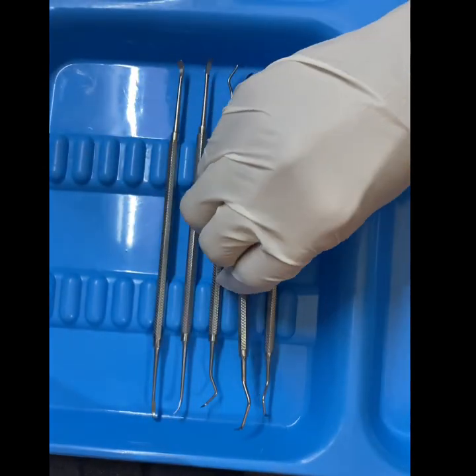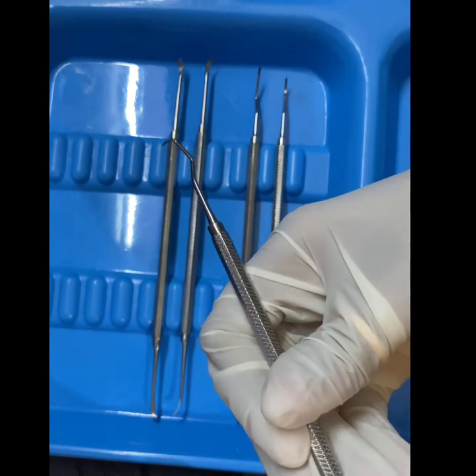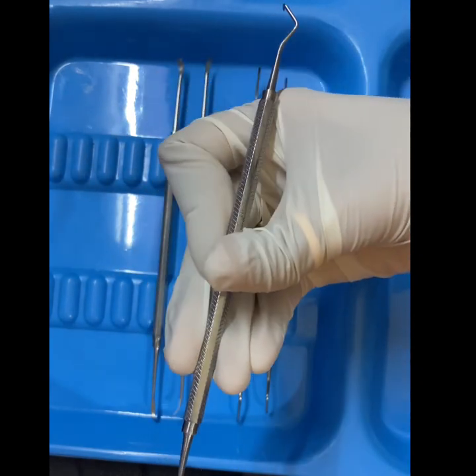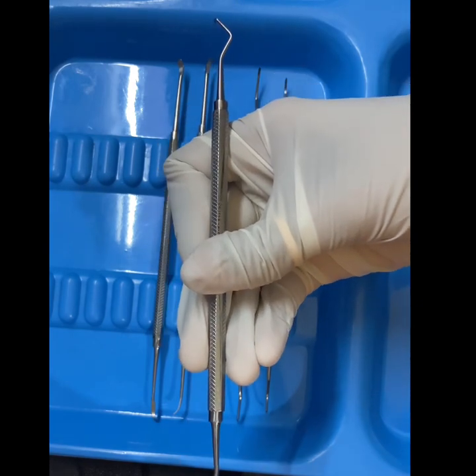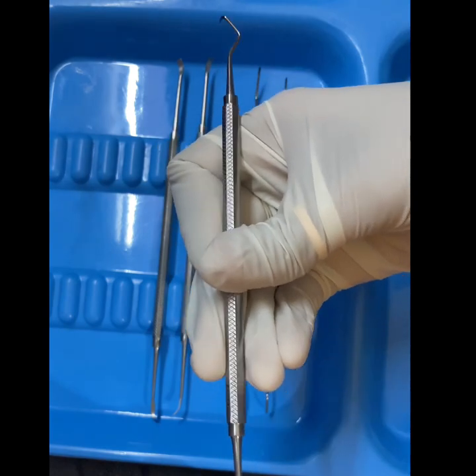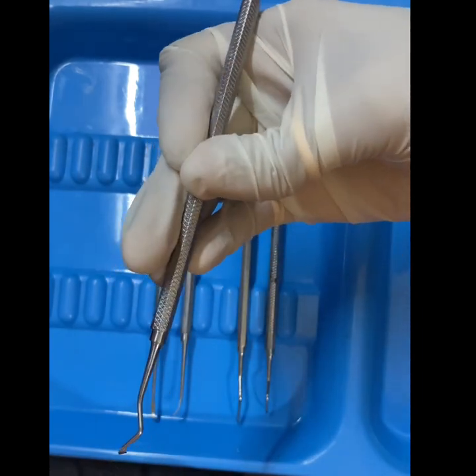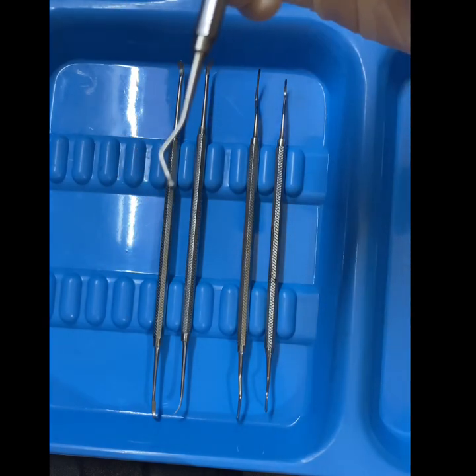This one is the posterior hatchet — look at the angulation. Here we can easily view the blade design. This one is the posterior hatchet, and you can easily identify it by its blade design.